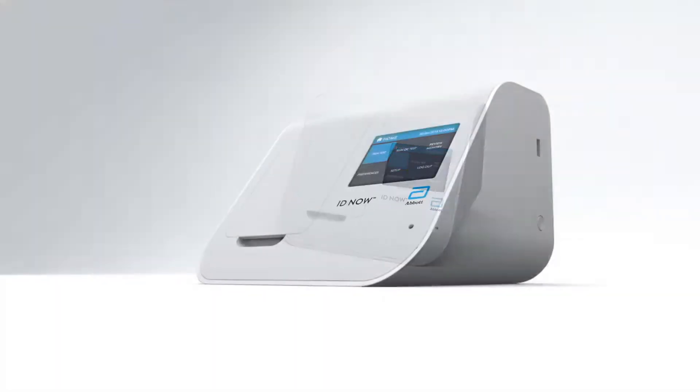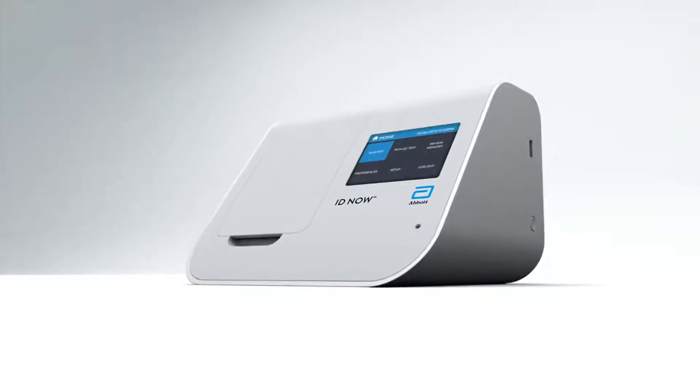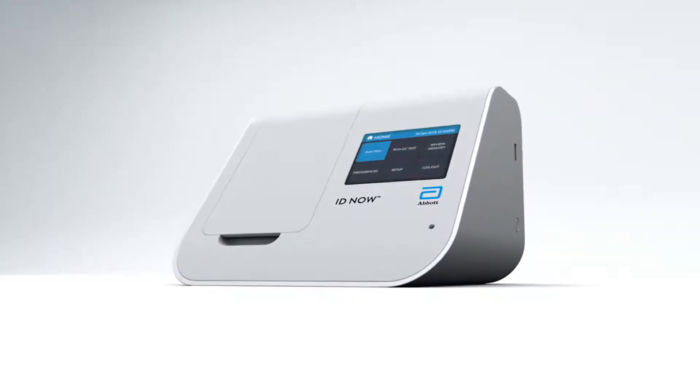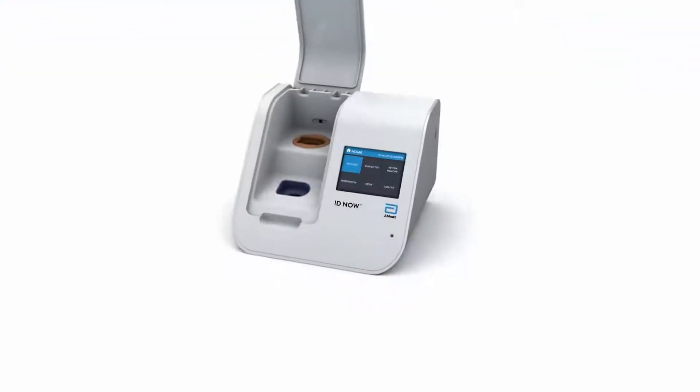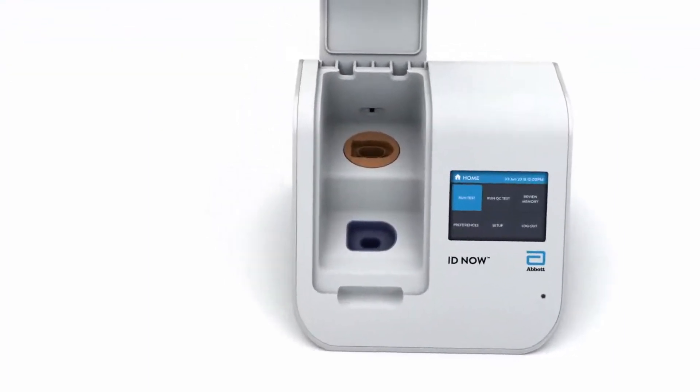The groundbreaking IDNow system is a rapid, instrument-based molecular diagnostic platform for the qualitative detection of infectious diseases. Designed to deliver high-quality molecular results in 13 minutes or less, IDNow is faster than any other molecular method.